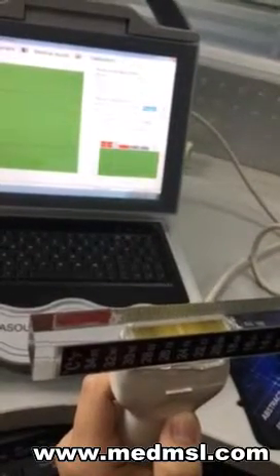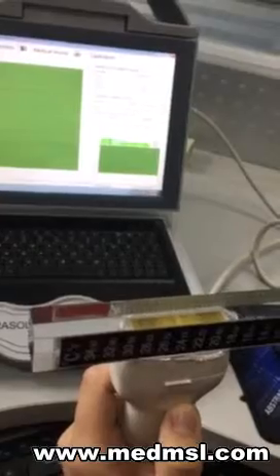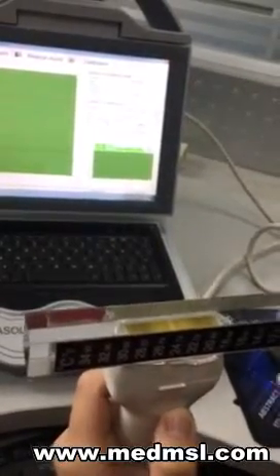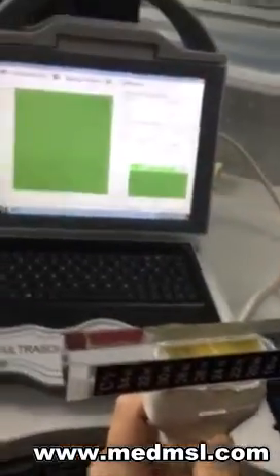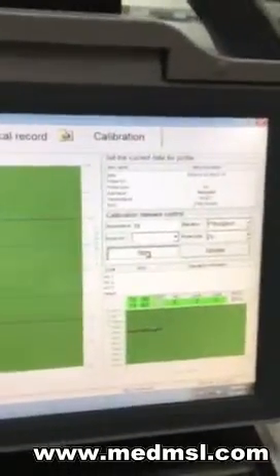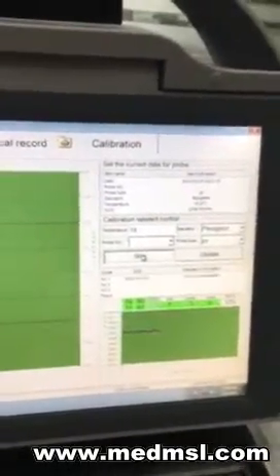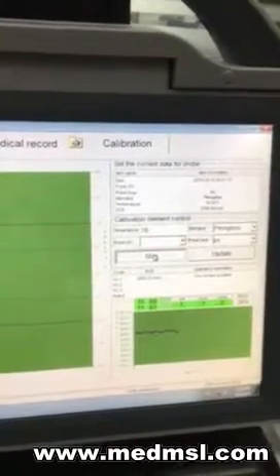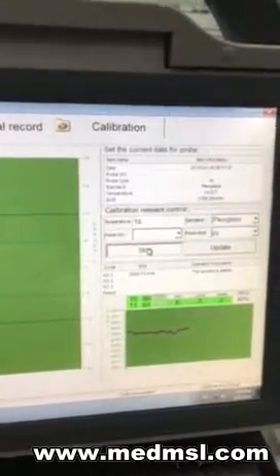Click Start to begin the calibration. The curve is extended forward.